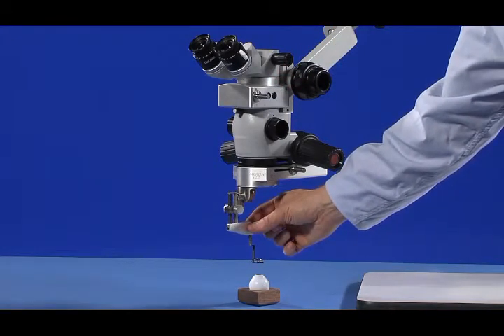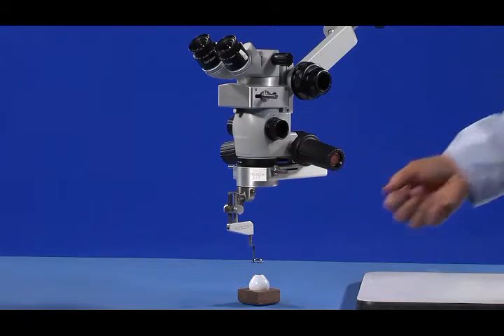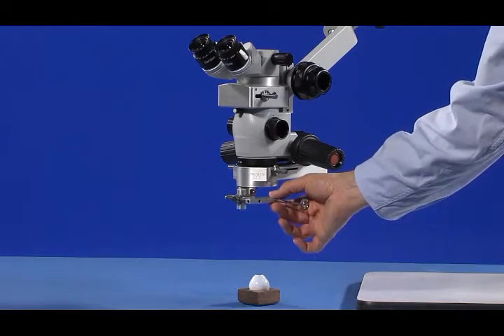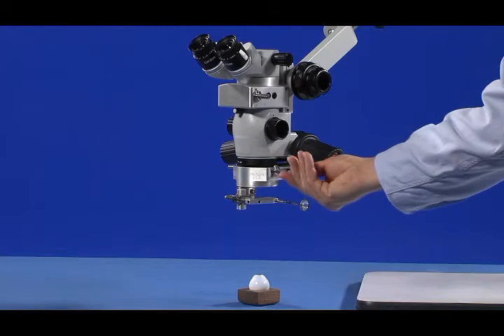If the LPU is switched to its down position in order to view the retina, then push the prism to its rear position below the physician's oculars and in the microscope's optical path. If the LPU is switched to its up position in order to view the exterior of the eye, then pull the prism to its forward position outside of the microscope's optical path.